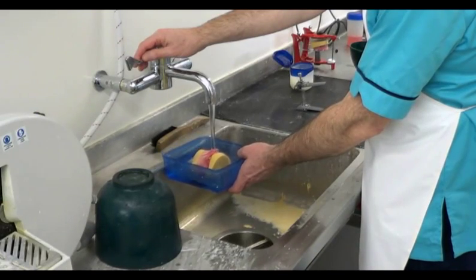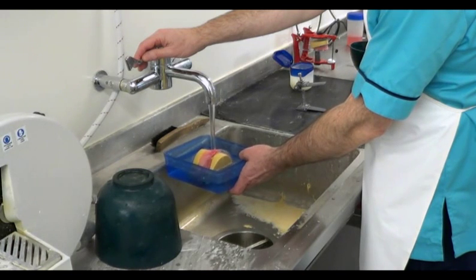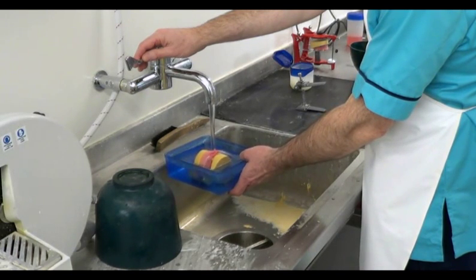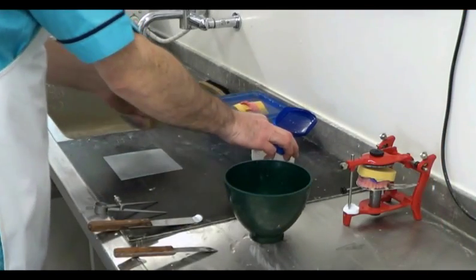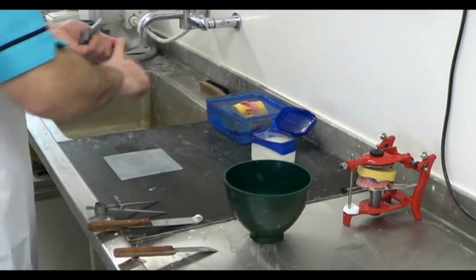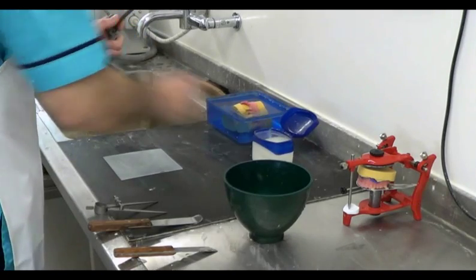For hinge articulation, the models must be moistened in order to prevent the plaster from drying out too quickly. In addition to this, the arms of the articulator should be applied with petroleum jelly so that they can be easily removed from the plaster later.